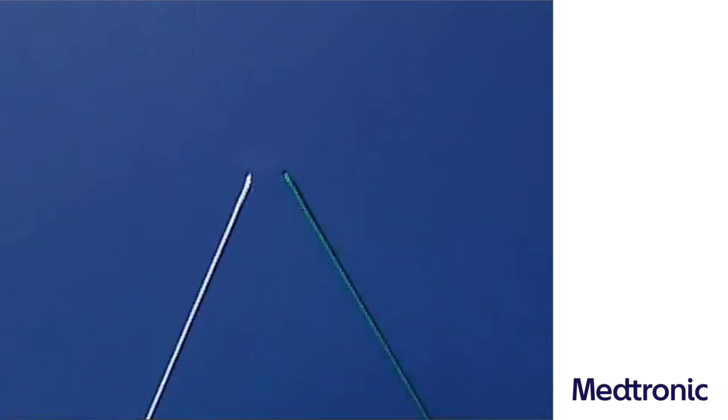The alternating crossing of hands, which is essential on the surface for the formation of the Sailor's Knot configuration, cannot be performed in depth due to lack of space.